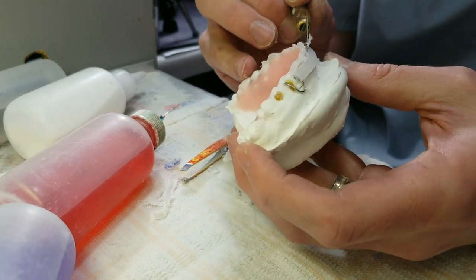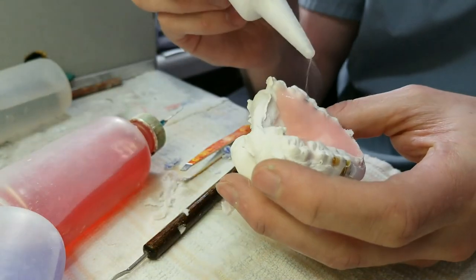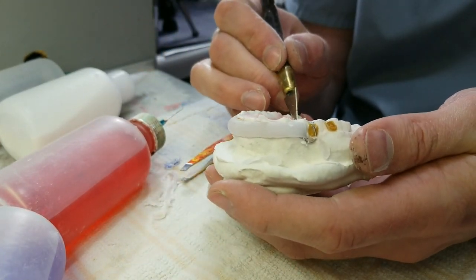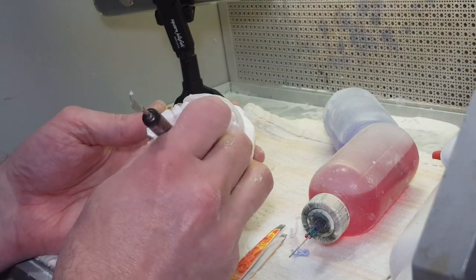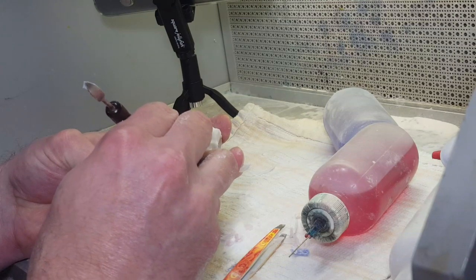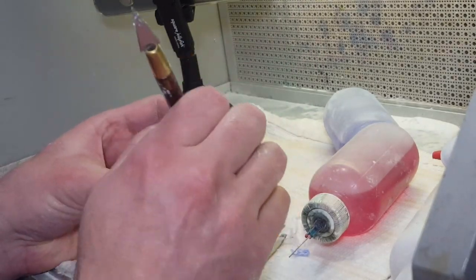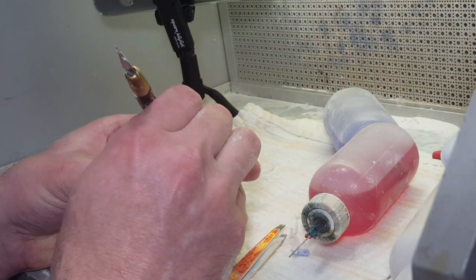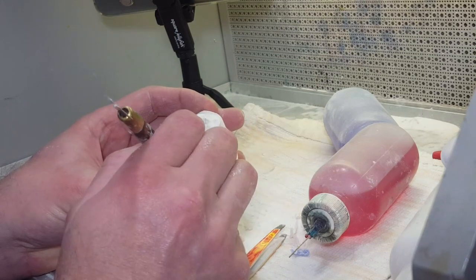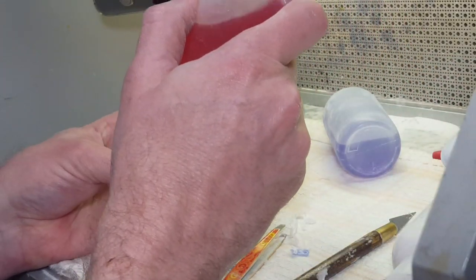Speaking of separation — on the Facebook page for the National Association of Orthodontic Laboratories, somebody asked how everybody does their separator. Mine: I do two coats. A preliminary coat when I prep all my models first, and then a second coat right before I start bending. I do a dry model — I like soaking too, I think it probably produces the best results — but I usually don't have enough time to wait. Some stones soak quickly, but some can take 30 minutes because you want to get all the air out of the model before sprinkling, otherwise you'll get big bubbles in your acrylic.